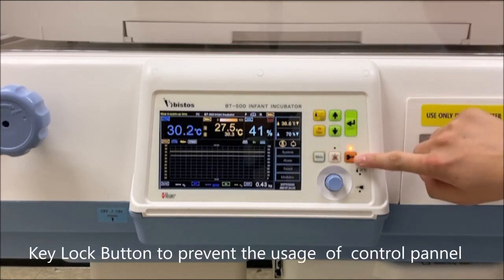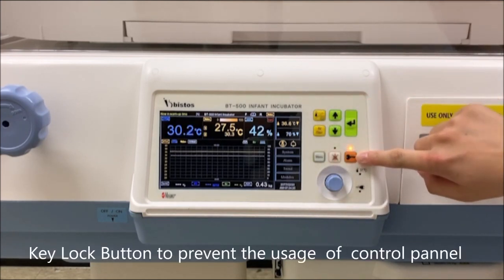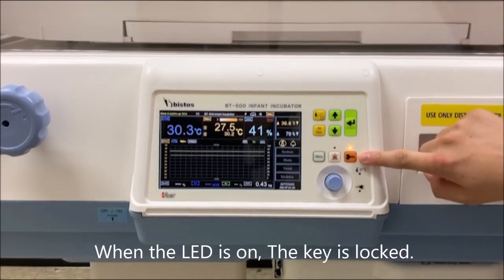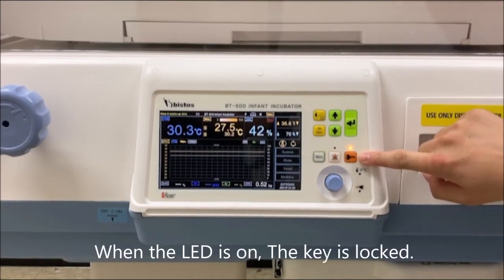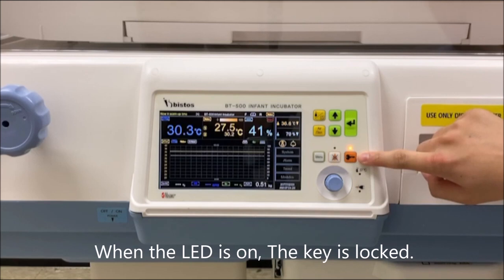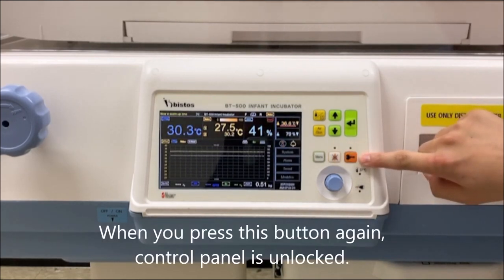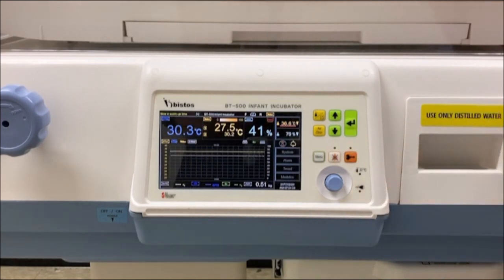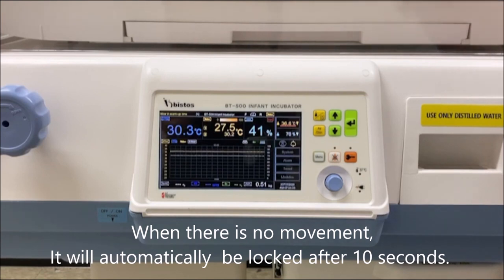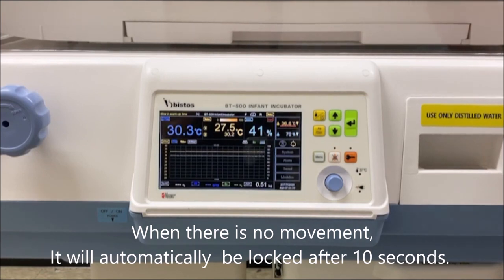This button is a key lock button to prevent the misuse of the control panel. When the LED is on, the key is locked. When you press this once, the key is unlocked. When there is no movement, it will automatically be locked after 10 seconds.